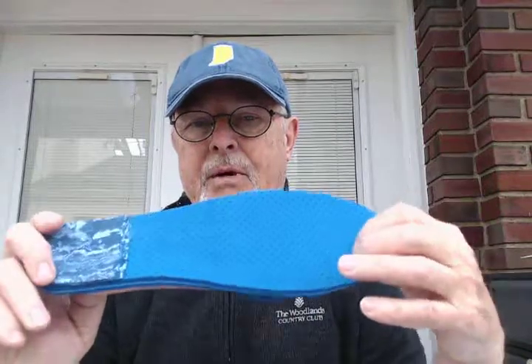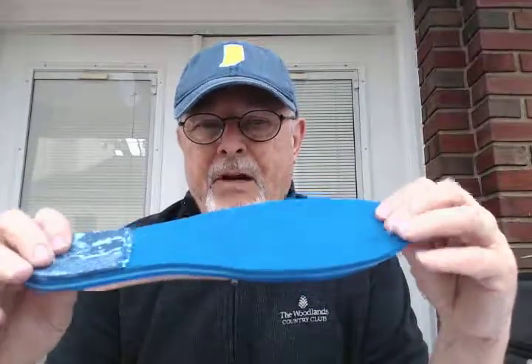The Trilam, overlaid with a perforated plastizote with a rubber arch support, and then a deep heel seat padded with some firm plastizote. So there's about four different materials in here — very long-lasting.